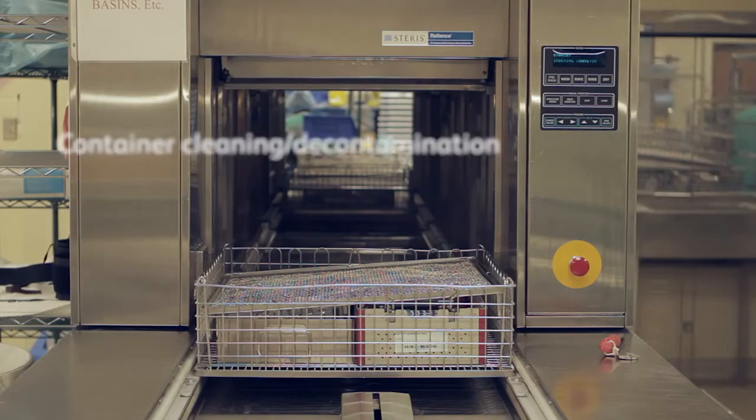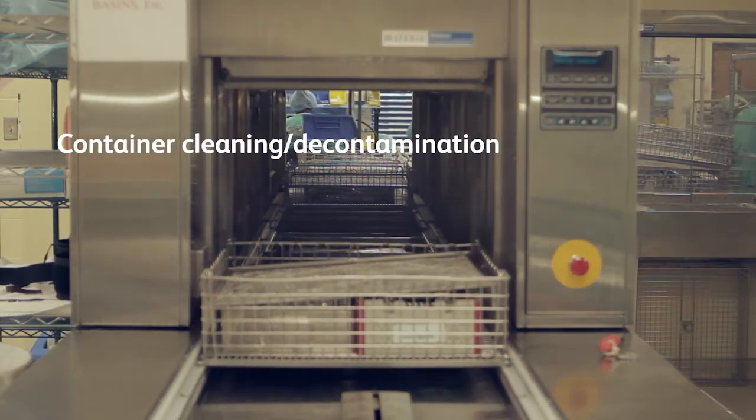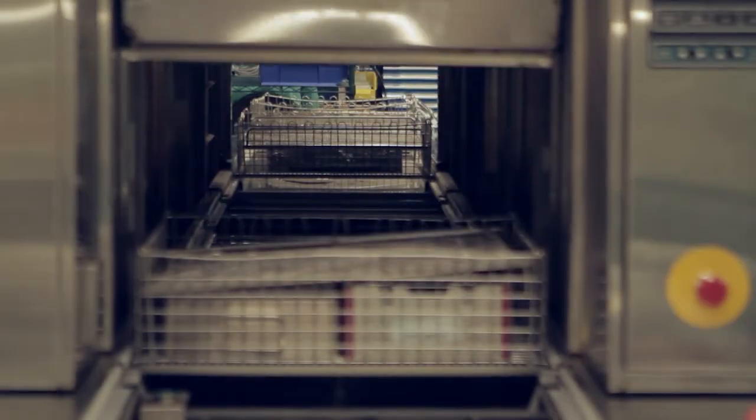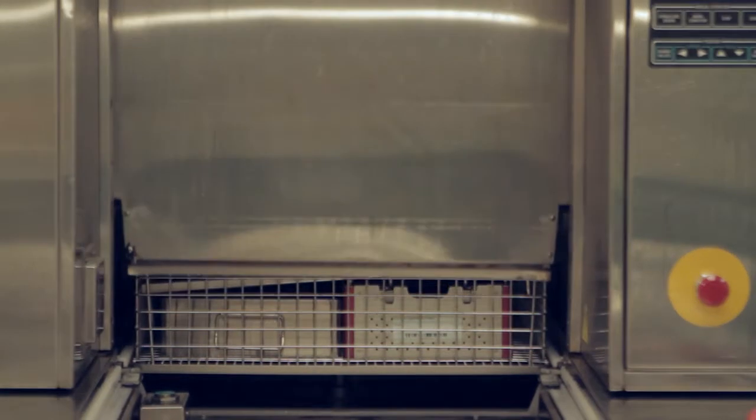All container components should undergo a complete decontamination process after each use. Consult the Genesis instructions for the full cleaning and processing instructions.